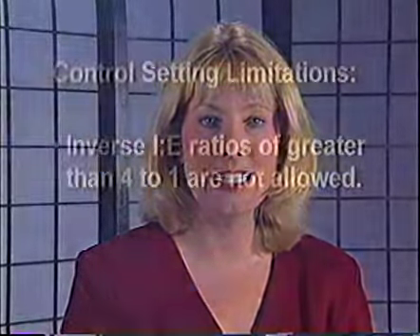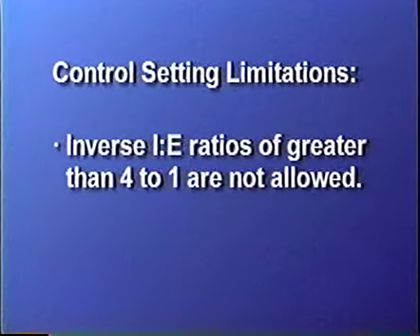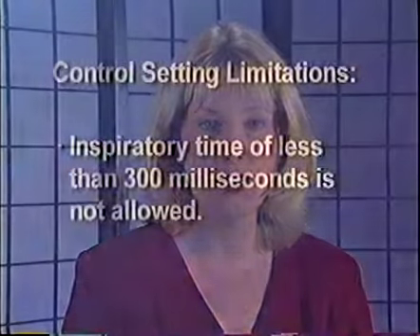Control settings may be limited to less than their normal range for any of the following reasons. The LTV will not allow inverse IE ratios of greater than 4:1. For example, with an inspiratory time of 1.2 seconds, if we try to set a breath rate of 40 breaths per minute, we are trying to create an inverse IE ratio of greater than 4:1, and the display will flash.